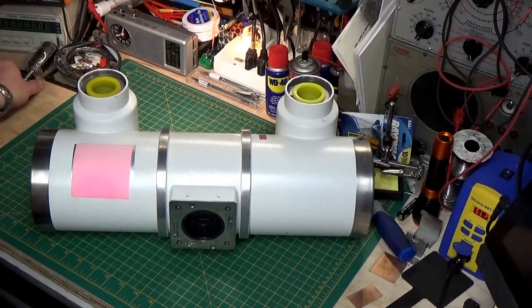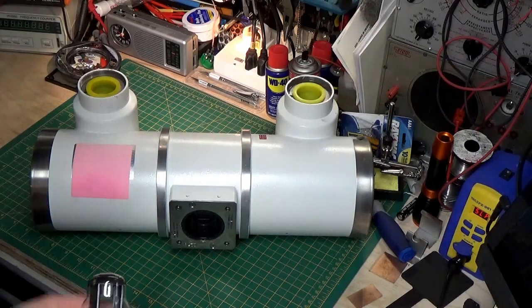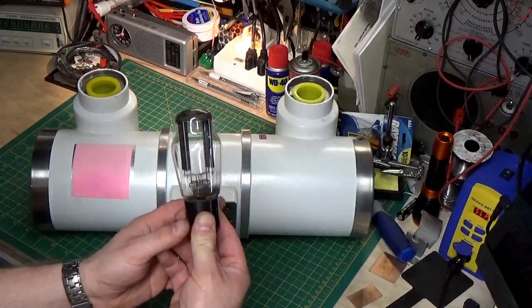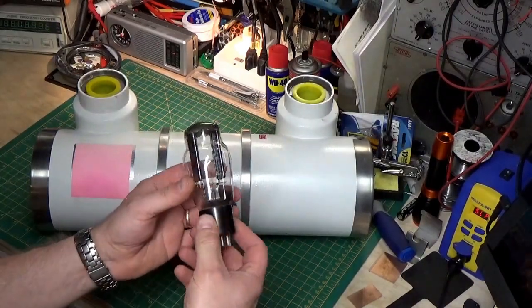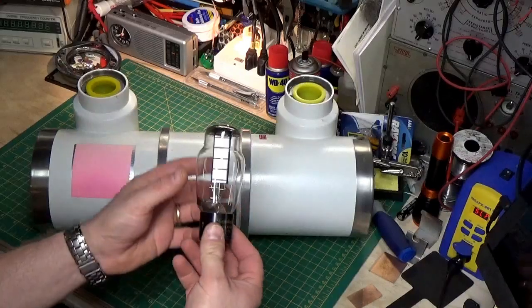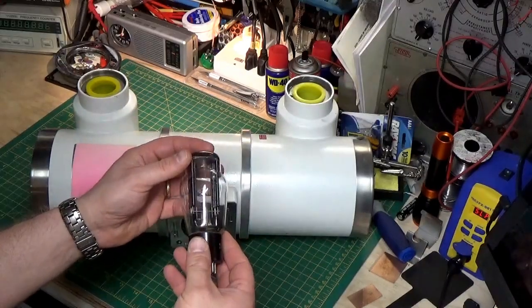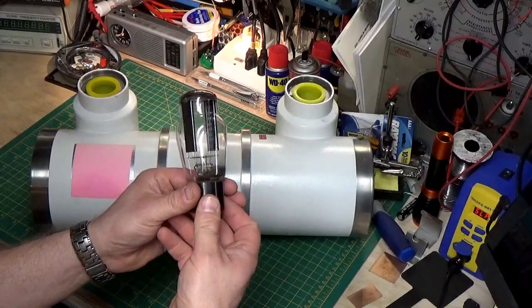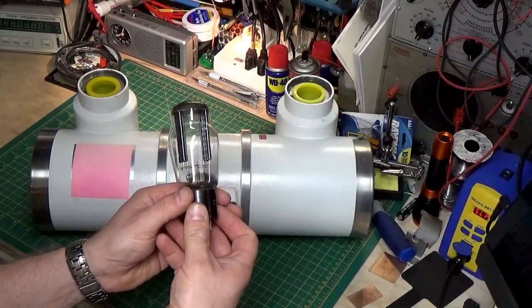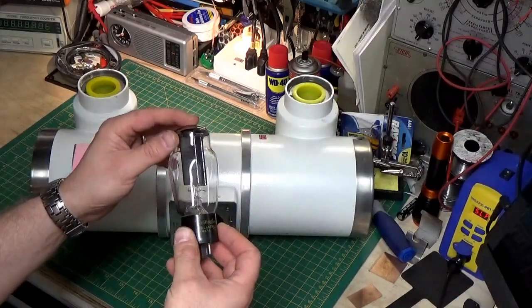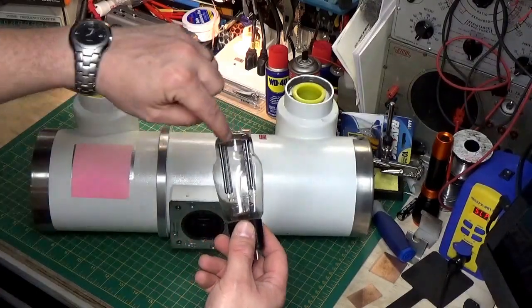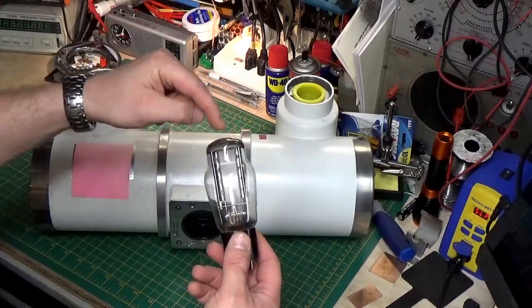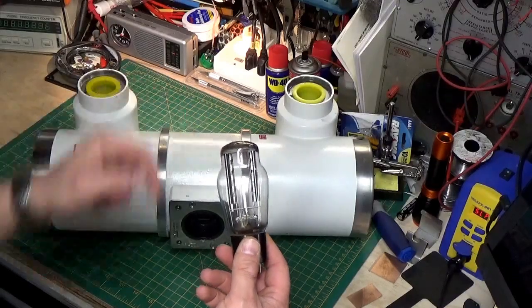So, let's start with something here that may be more familiar to some of you. If you look here, this is just a standard vacuum tube. And for those of you who may be into electronics, especially vintage electronics, you'll recognize this as a 5U4. And if you look, there are two elements in here. Each one is an actual diode tube.